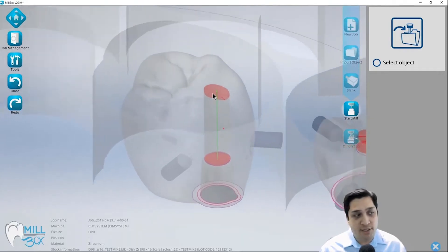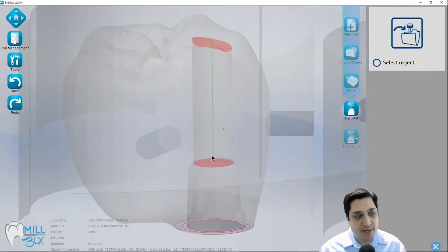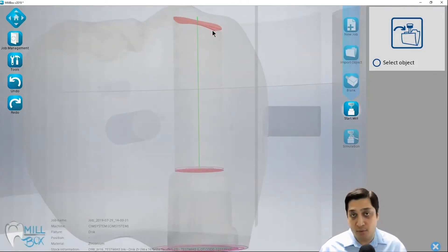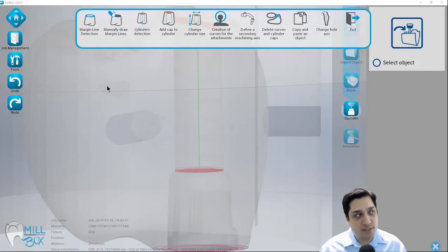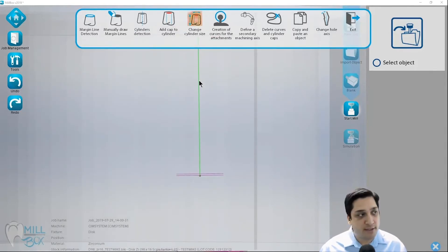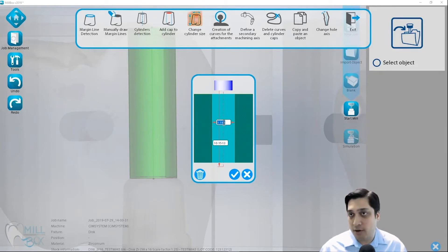The next criteria is having the drilling axis curve present. In older versions it will be magenta; in 2019 and up it shows as a green curve going all the way down through the bottom of the access hole. The drilling operation uses this to detect the axis to drill from, as well as the milling depth and the diameter of the hole. You can adjust this by going to Tools, Curves and Surfaces, and clicking Change Cylinder Size. Clicking on the curve shows you the current diameter - listed here as 3.188 millimeters - and you can adjust it to a larger or smaller value.